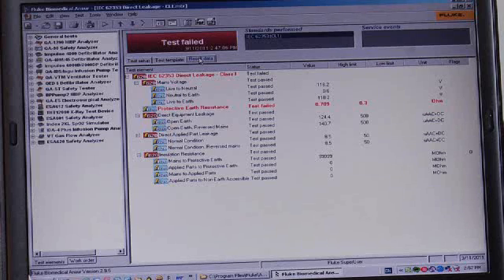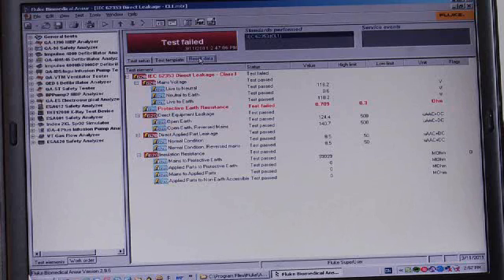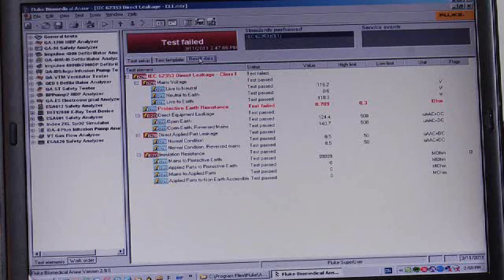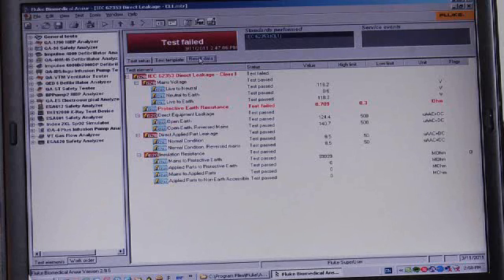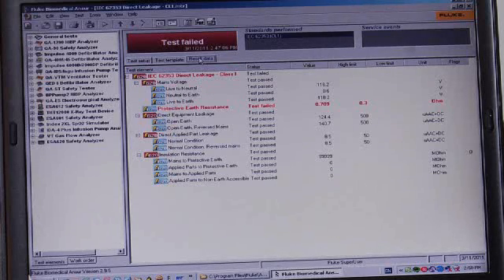This is the test result file that's created as you click next from the test summary screen. You can see that it looks very much like the test summary screen, shows us all the tests that were performed, the test measurements that were made against the testing limits. It shows us which tests failed and which tests passed.